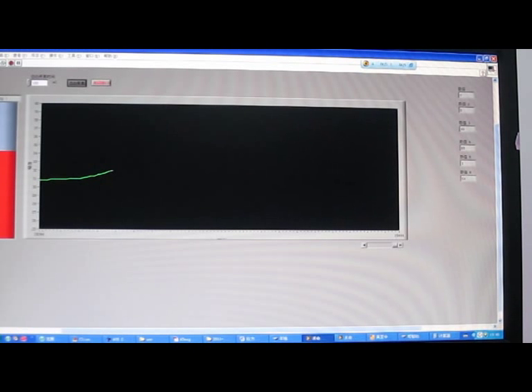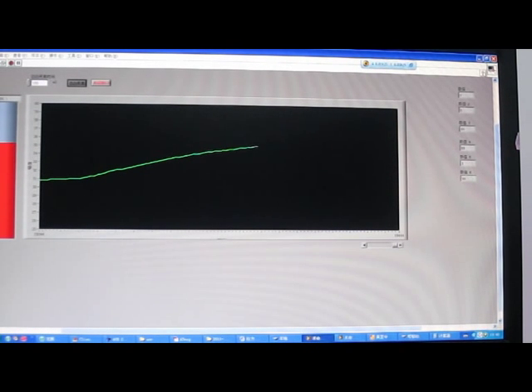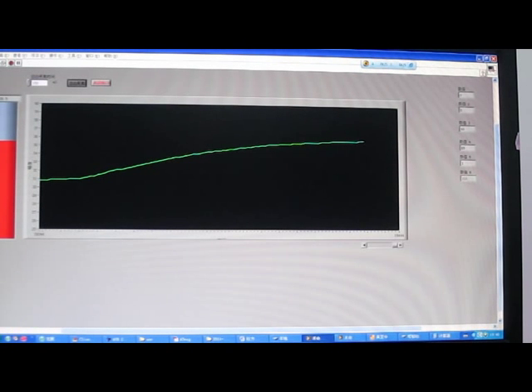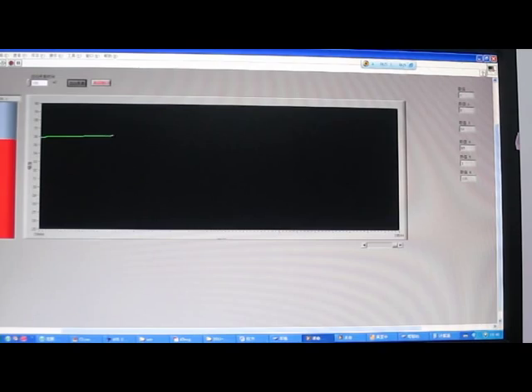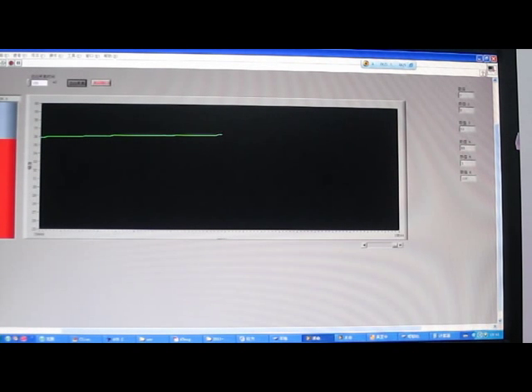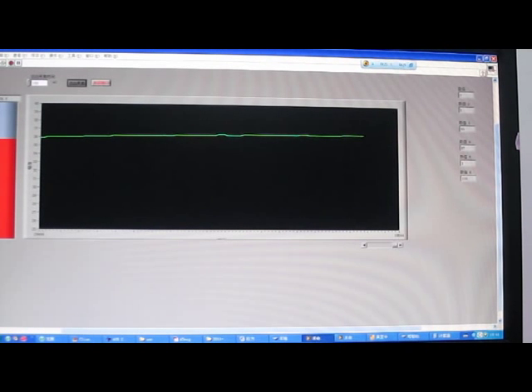The sensors in our system can be an ECG electrode, a microphone, or a thermistor. Now we observe the transient response of the thermistor. It takes about 10 seconds to go to the steady state.